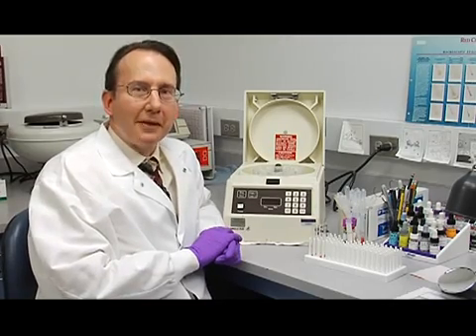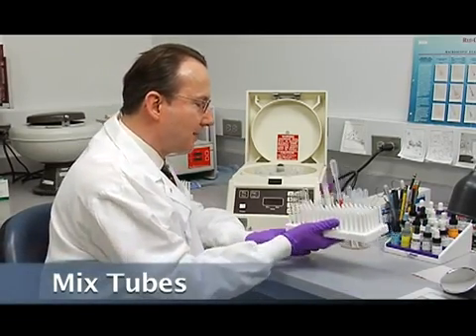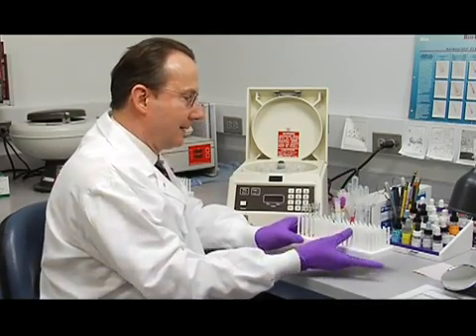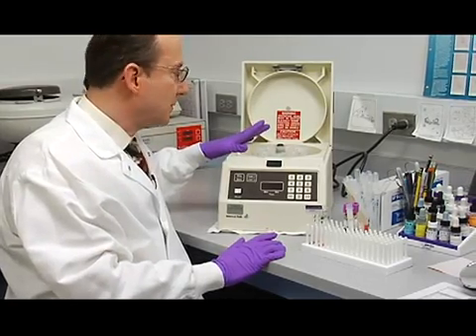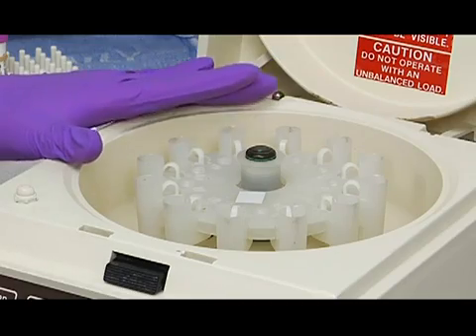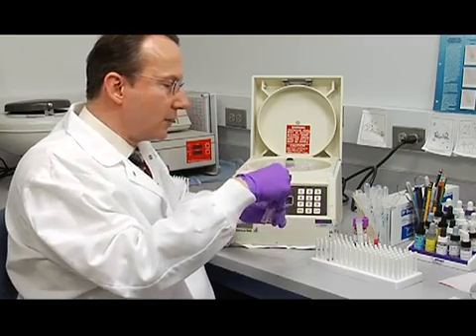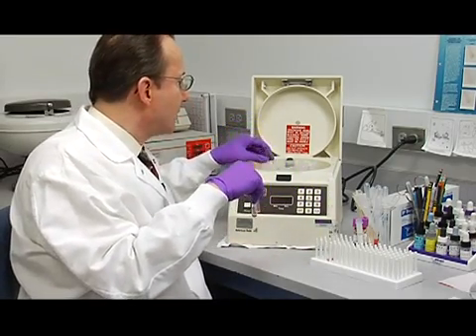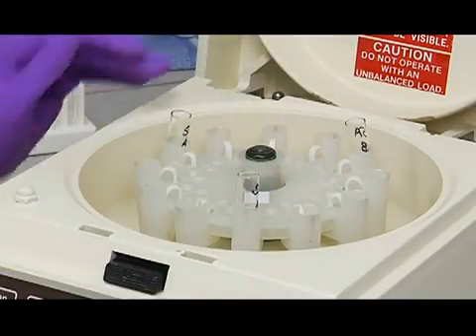Now we're ready to spin down the tubes in the centrifuge. First you need to mix your tubes. You can just shake your rack like this. Then I'm going to show you how to balance an odd number of tubes in the centrifuge. Make sure that if you're doing labs on campus that you check with your lab instructor before using this method. To balance an odd number of tubes, you'll take the first 3, and I mix again, and you're going to make an equilateral triangle with those first 3 tubes, just like that.